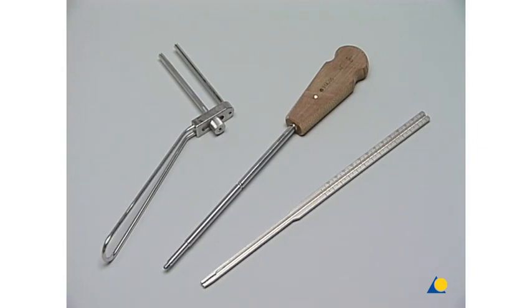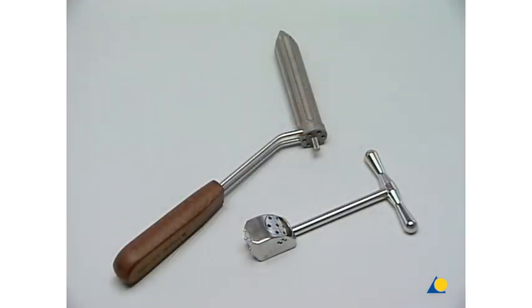There are two additional guides available. The one on the left is for the minimally invasive or percutaneous approach, while the other guide allows the angle of the introduction to be altered.